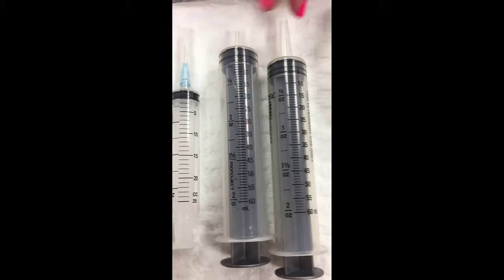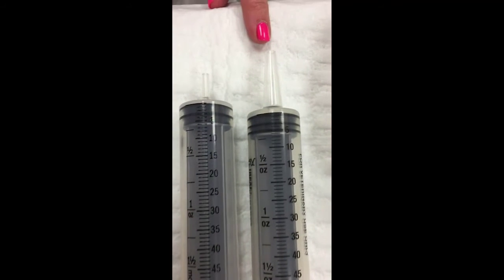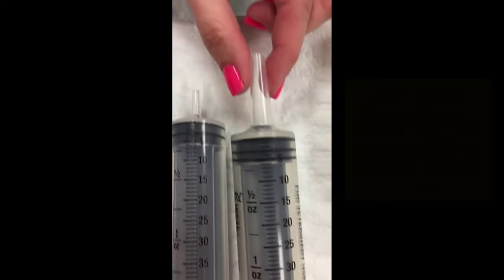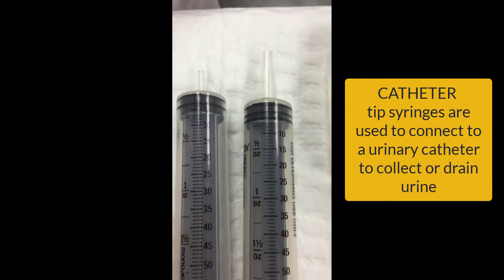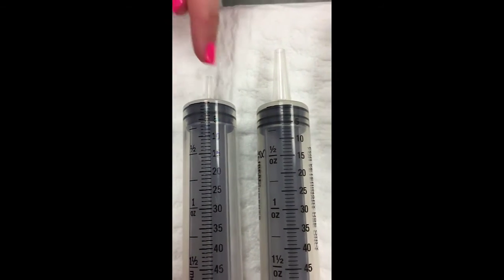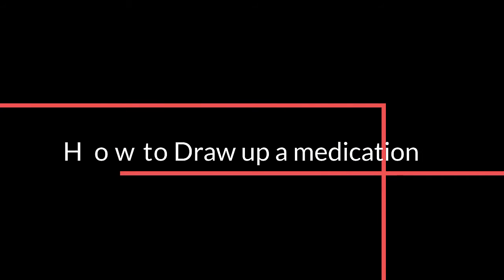The next ones we have here are 60 mil syringes, and you can see that there are different types for these as well. This one here is called a catheter tip syringe, and you can see how it has a much wider tip, and then it narrows down towards the tip of the syringe, where this one is a regular one, as the previous ones demonstrated, and it's in the center of the end of the syringe.